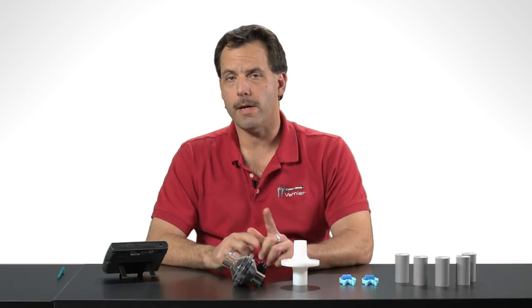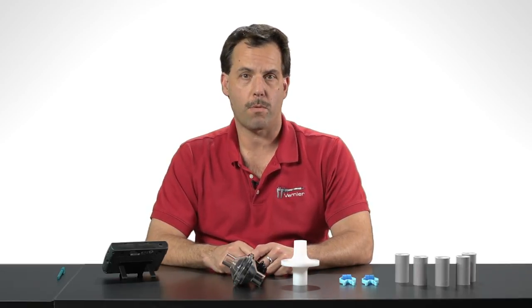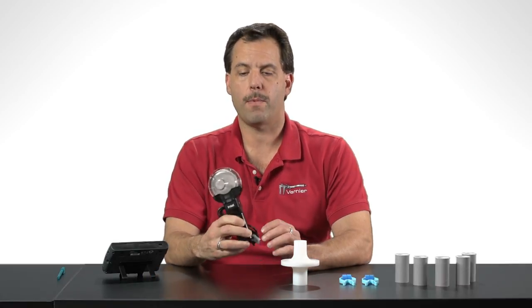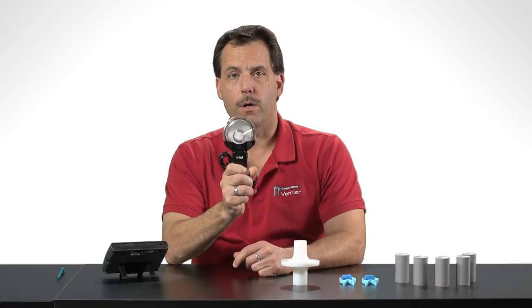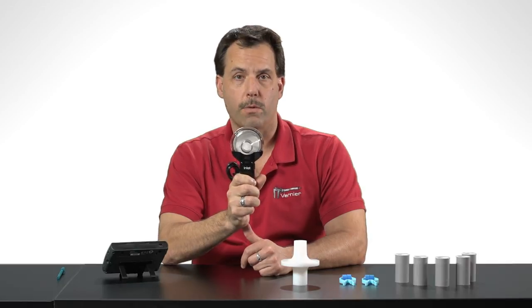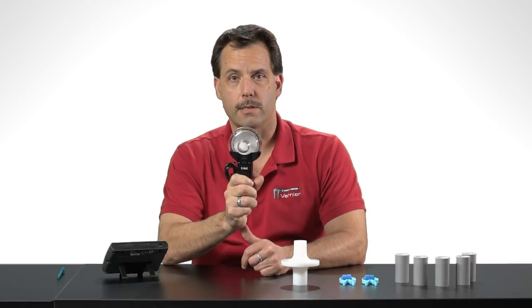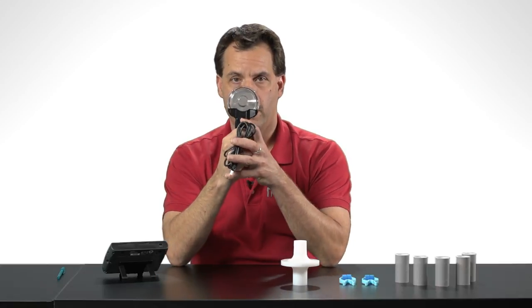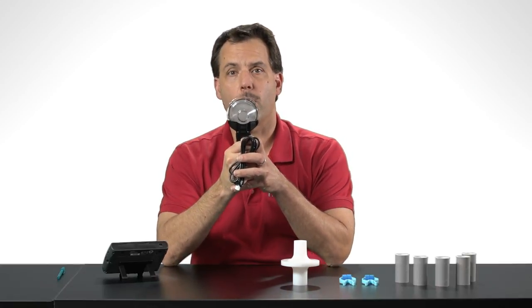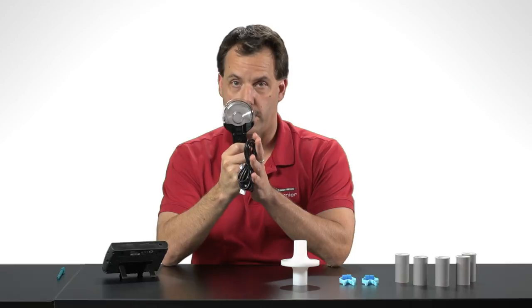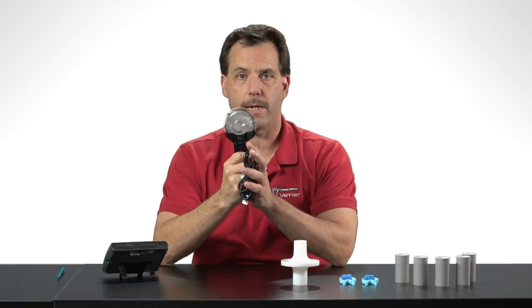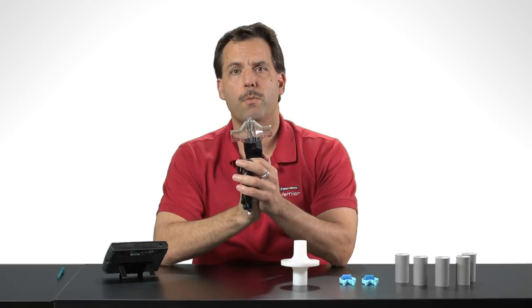Now there's a couple of key things that you need to know about the spirometer to get good data. One is that the spirometer needs to be zeroed in the position that it's going to be used and it needs to sit still. So if I'm going to be using the spirometer at about this level, I need to make sure that once I plug it into the LabQuest, I zero it in that position and I don't bend back or forth or move from side to side. So let me just put the spirometer together.